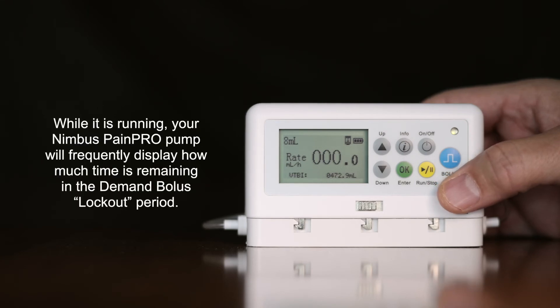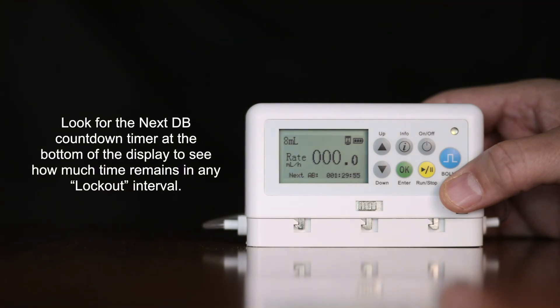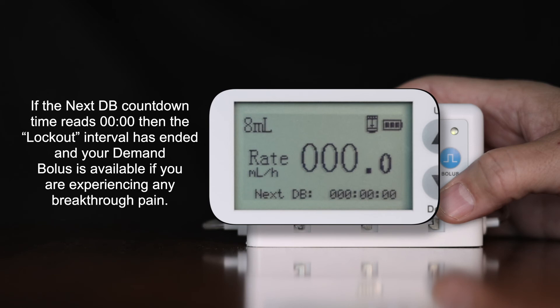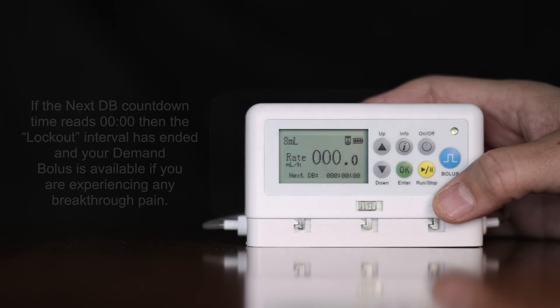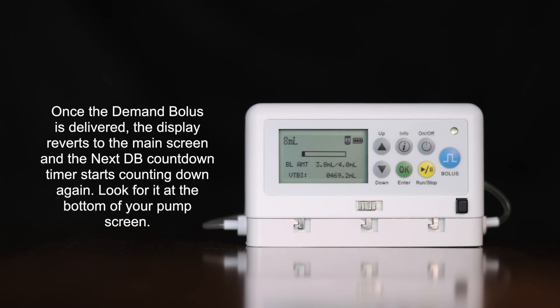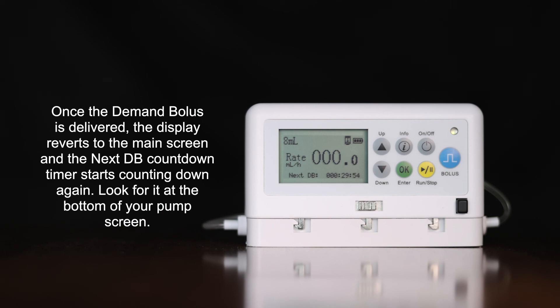While it is running, your Nimbus Pain Pro pump will frequently display how much time is remaining in the demand bolus lockout period. Look for the 'Next DB' countdown timer at the bottom of the display to see how much time remains. If the Next DB countdown timer reads all zeros, the lockout interval has ended and your demand bolus is available. When you press the blue bolus button to activate your demand bolus, you will see a progress bar on your pump display as it is being delivered. Once the demand bolus is delivered, the display reverts to the main screen and the Next DB countdown timer starts counting down again.